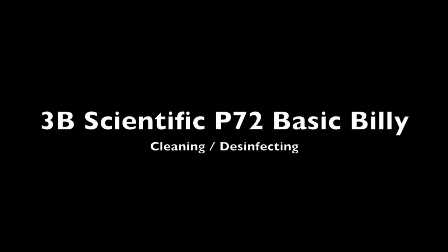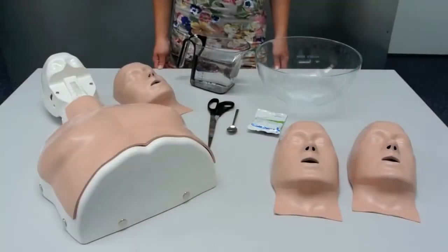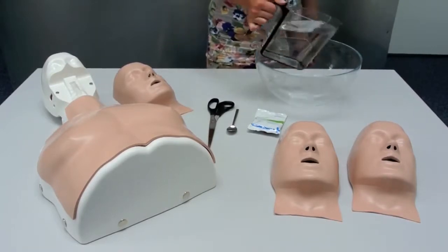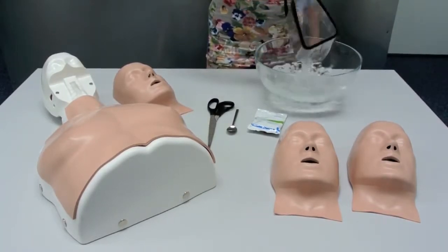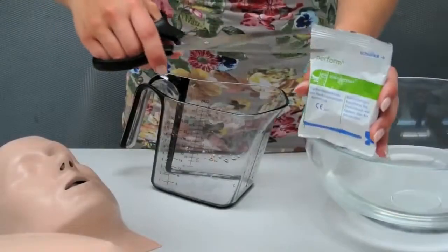Cleaning and disinfecting Basic Billy. Add cleaning solution to warm water.